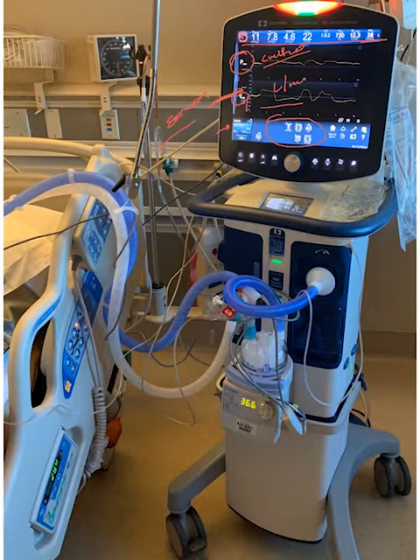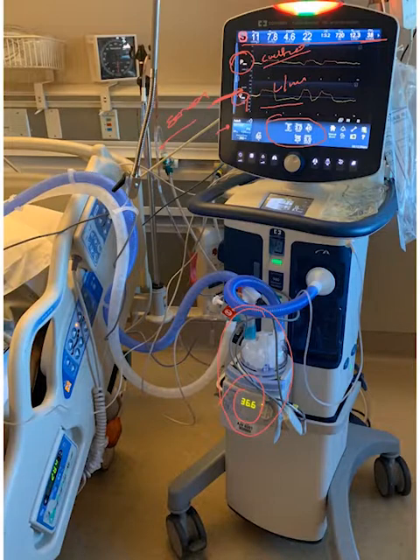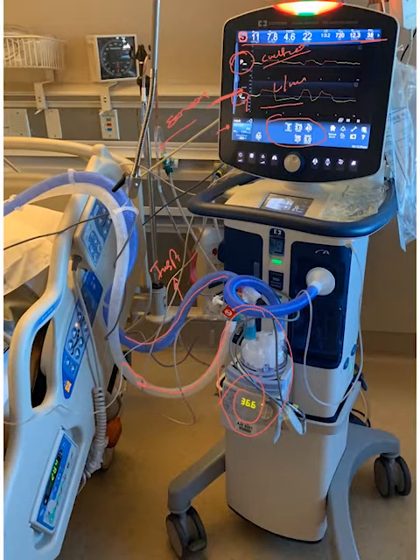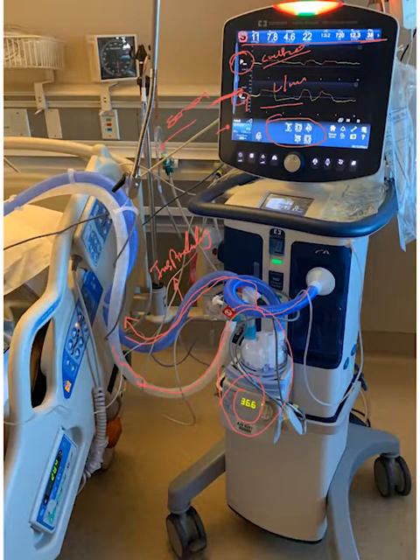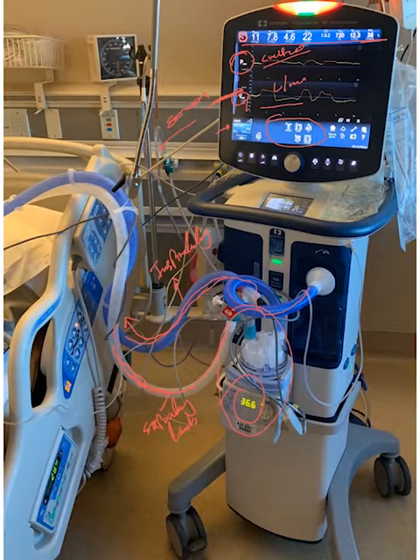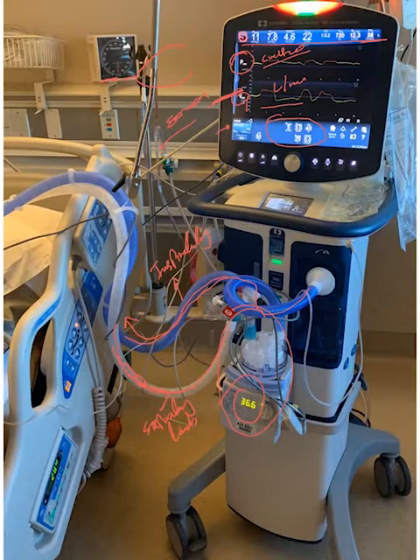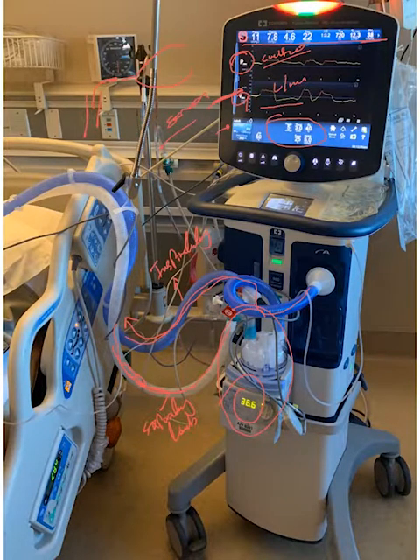You can also see the humidifier and the temperature here. The ventilator has two circuit tubes: a blue tube and a white tube. The blue tube is the inspiratory limb, where air exits the ventilator and goes to the patient. The white tube is the expiratory limb, where air goes back. They meet to form one tube, which connects to the endotracheal tube that goes inside the trachea.